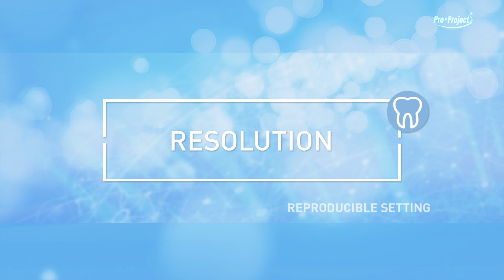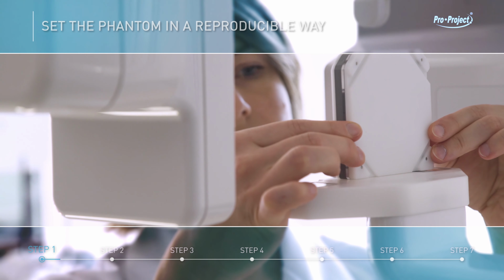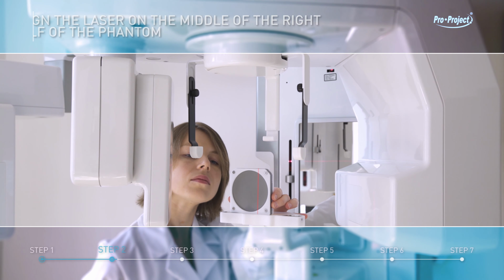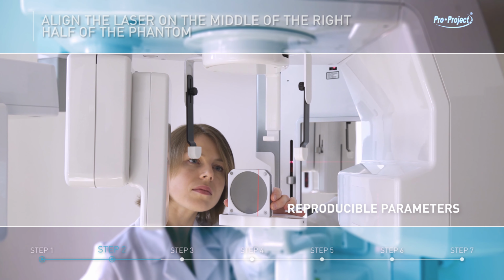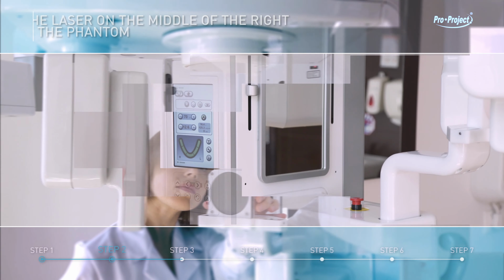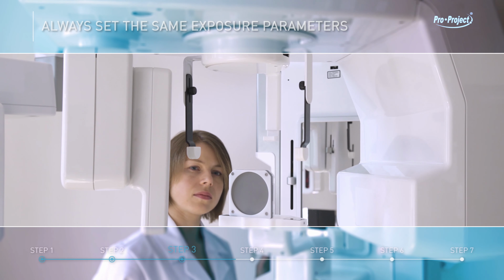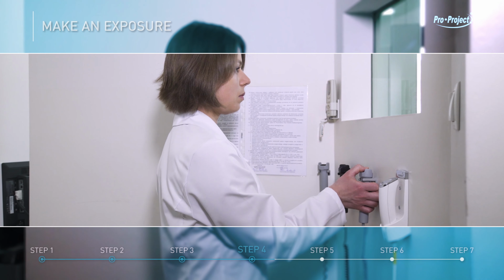Resolution. Reproducible setting. Set the Phantom in a reproducible way. Align the laser on the middle of the right half of the Phantom. Reproducible parameters. Always set the same exposure parameters. Make an exposure.